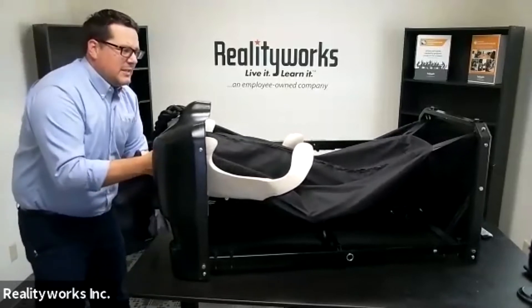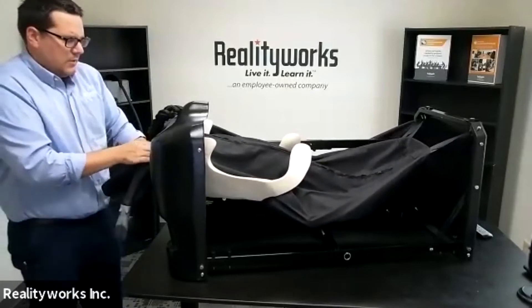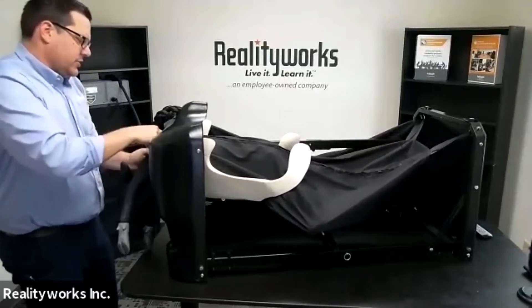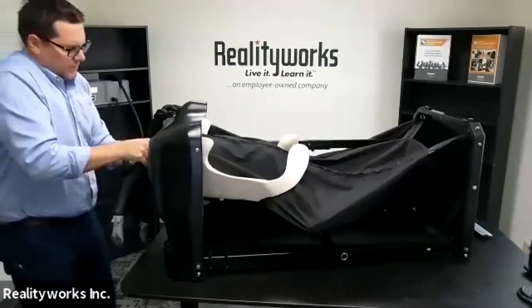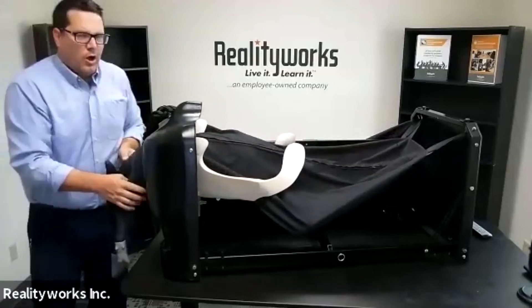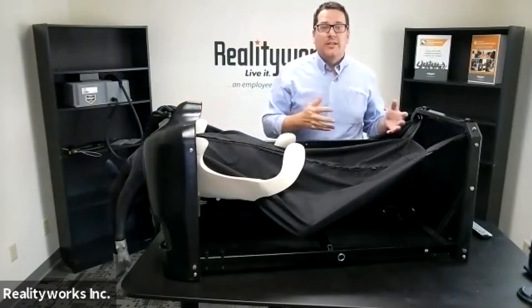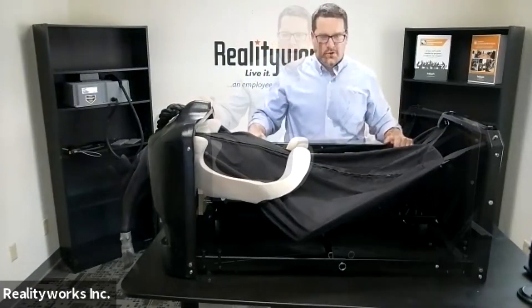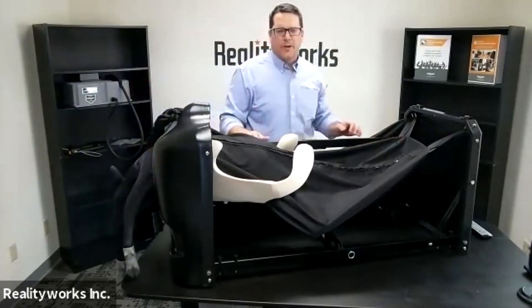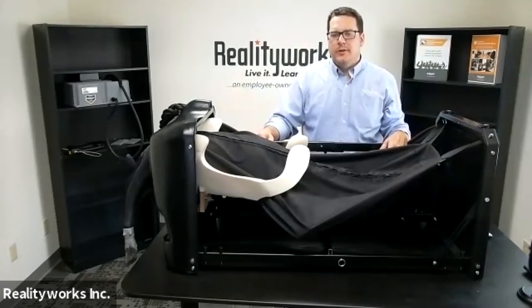I felt the need — maybe I use a strap if needed. I just felt the pop from the shoulders giving way, allowing me to bring this animal out. I keep pulling and maneuvering it around. All of this allows you as an instructor to demonstrate this and gives students the opportunity to maneuver it. You can see the pliability on the back end as you pull it out — a tabletop allowing you to do a full birthing simulation.